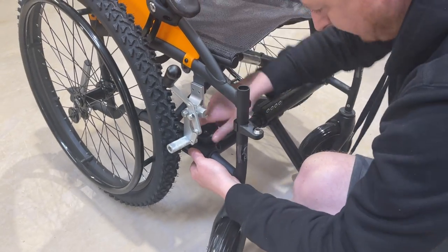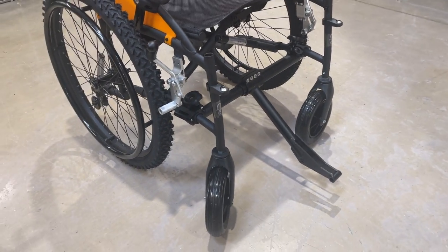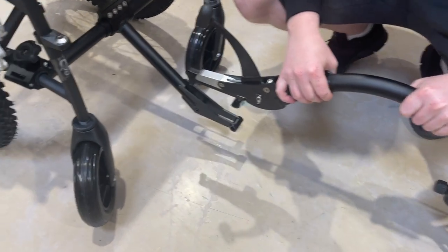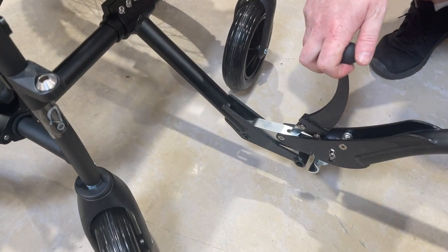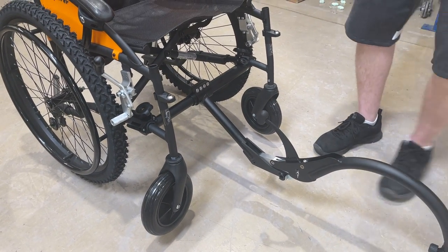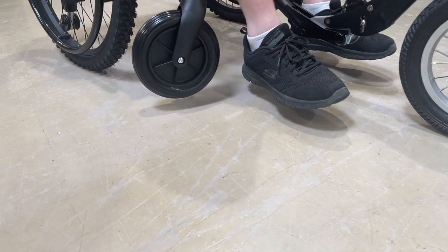You're then left with the G-Explorer and the folding adapter. The three-wheel clamps onto this section — put the wheel in a tilt position. In order to give enough clearance on the caster wheels, it's been set up so that you put it in at the back, then lift the chair slightly and lock it into place. When you sit in the wheelchair, twist the wheel back underneath and you'll notice that gives you clearance on the caster wheels.